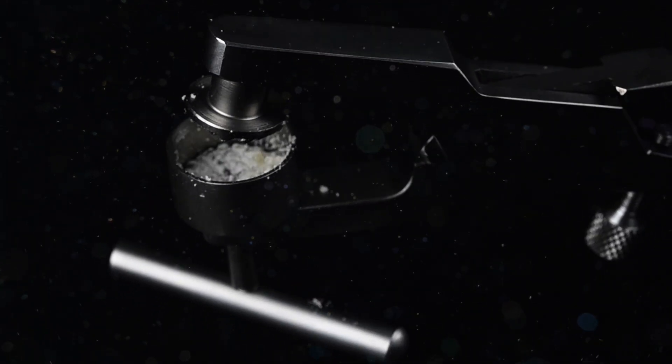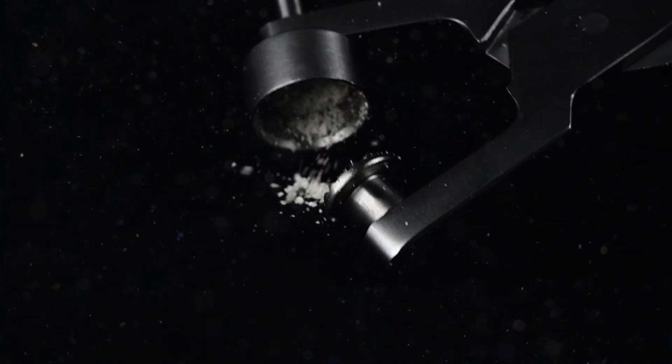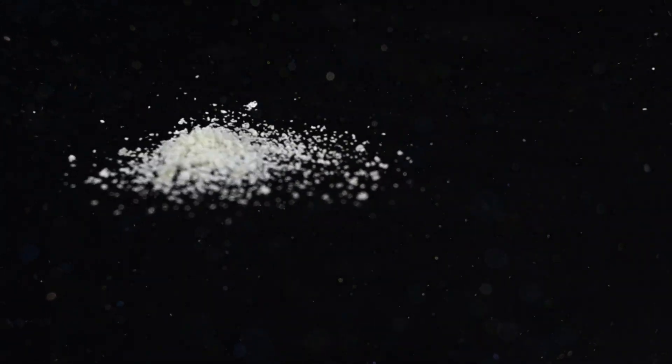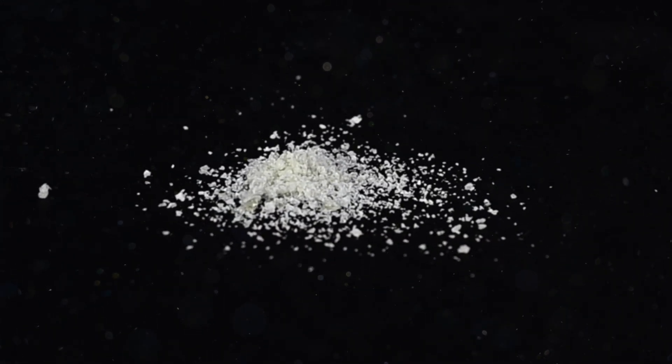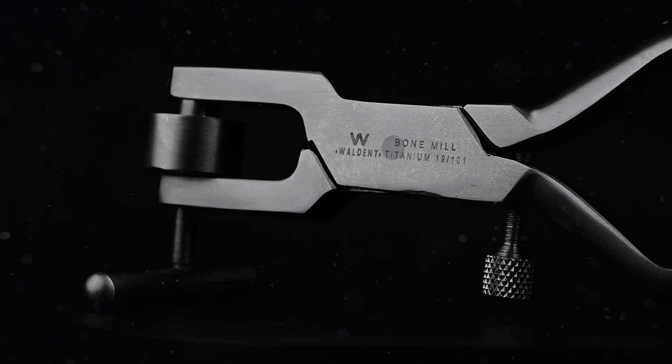After it's processed, push the T-handle to remove the bone. Finely ground chips ready for bone augmentation procedures. This streamlined process ensures efficient bone preparation with optimal results for medical applications.